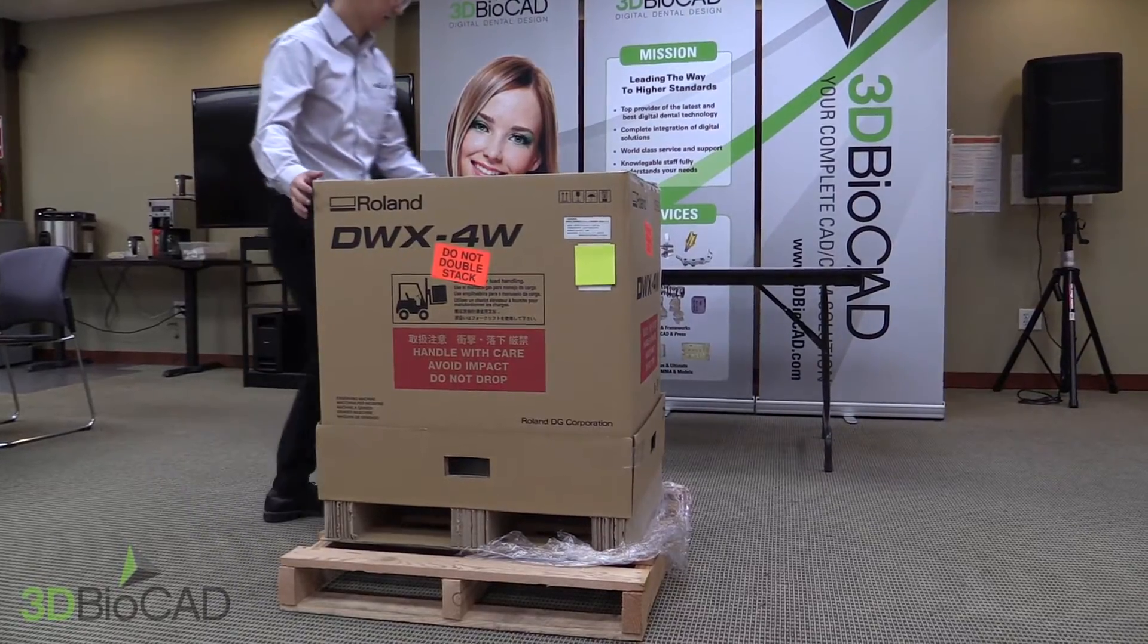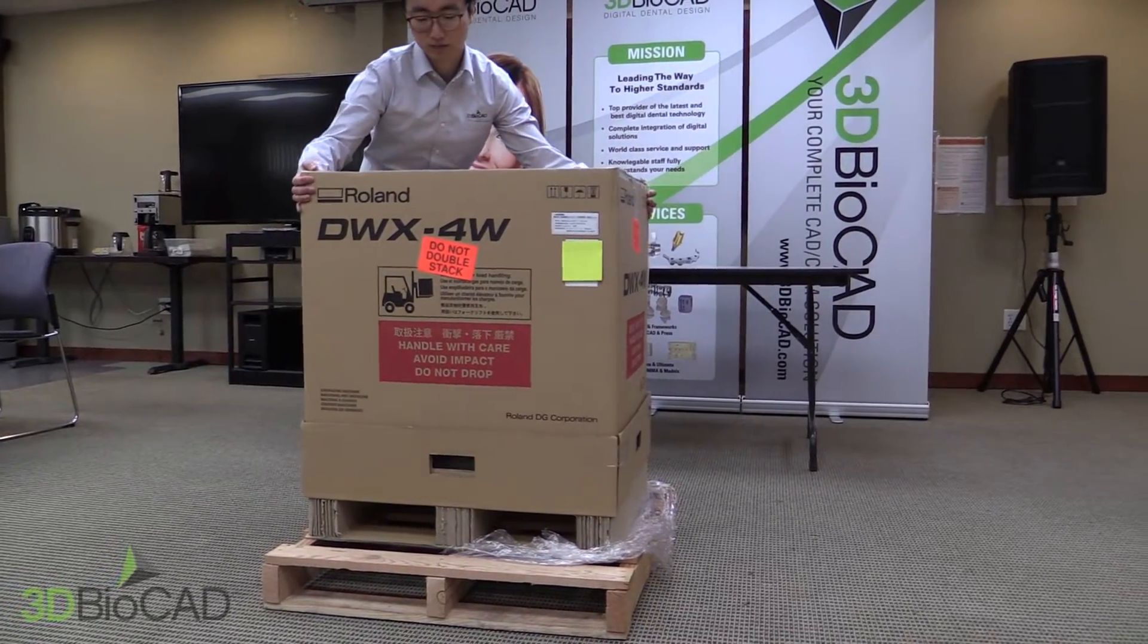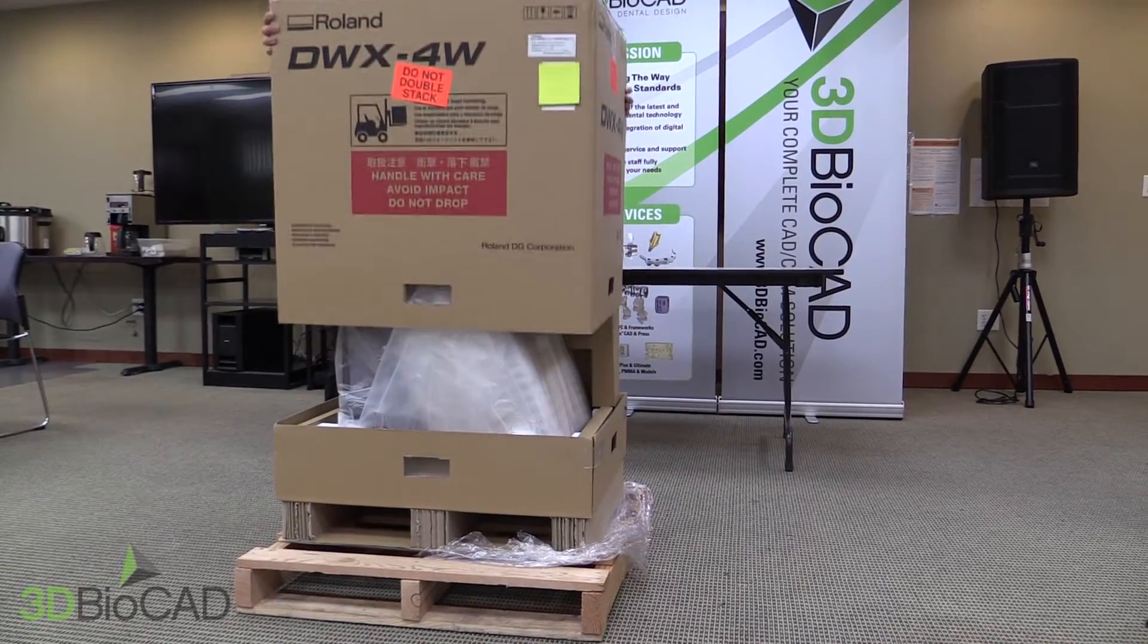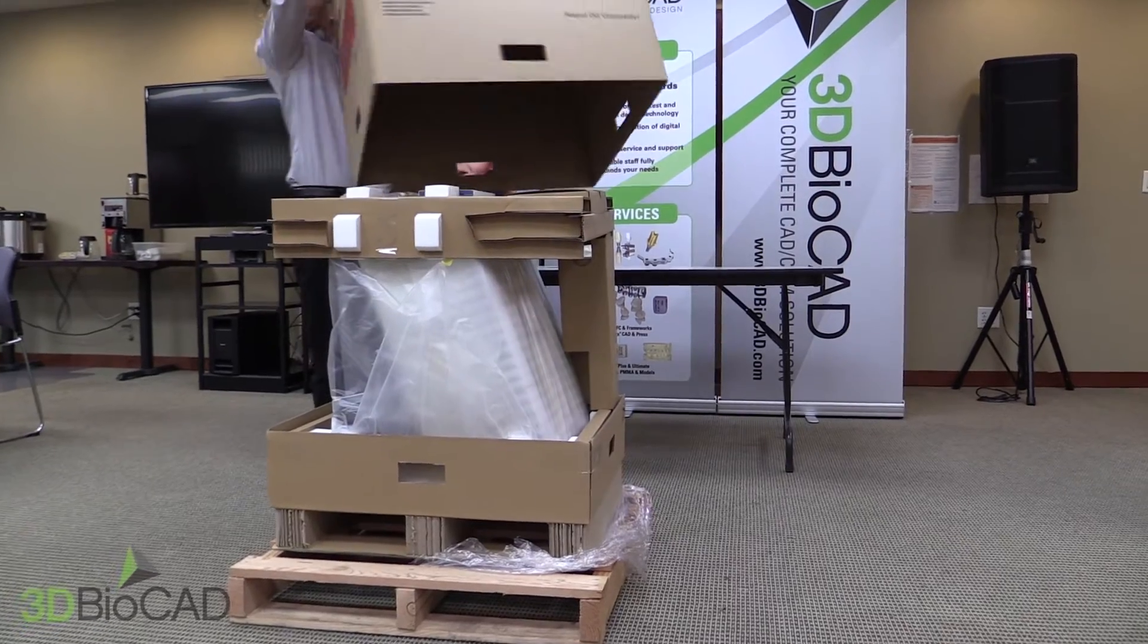Be sure when lifting the top of the box, you lift it straight up. This can be done with one person or two to be more efficient.